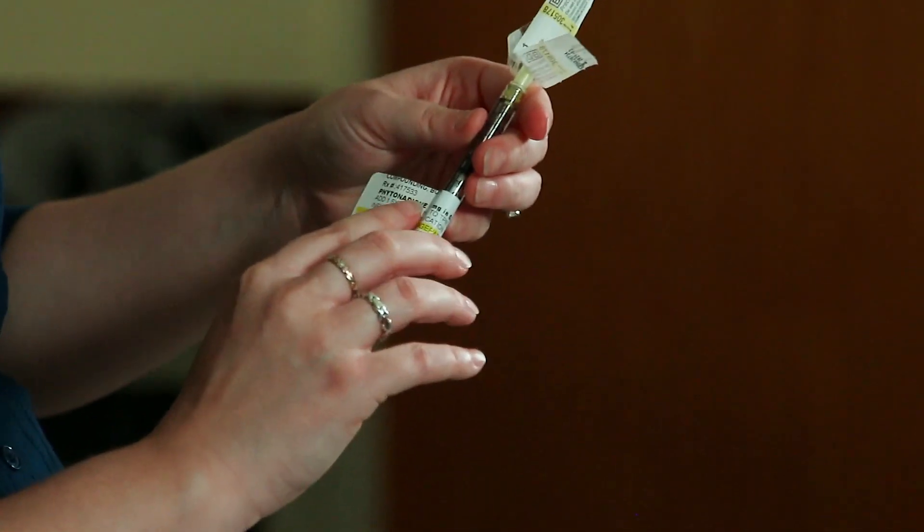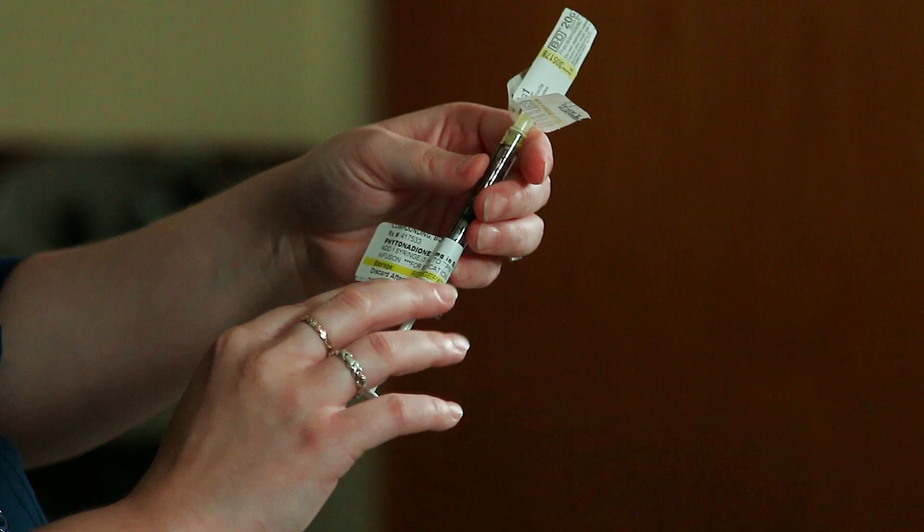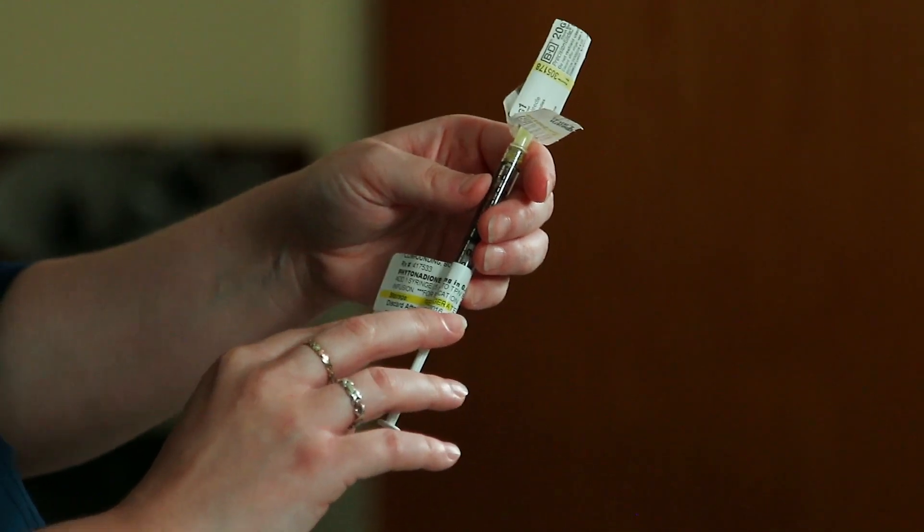Once again, you want to ensure that it is your name, it is the correct medication, and that it is not past the discard after date.